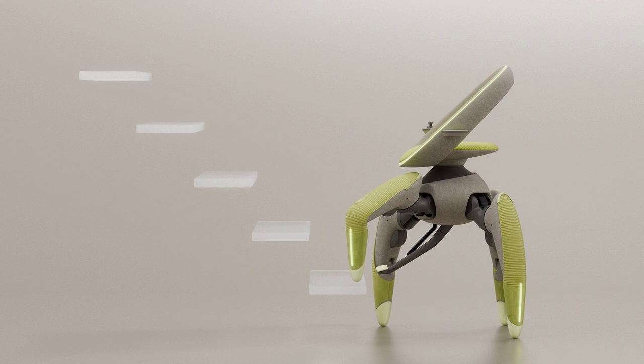Design and Functionality Mimicking Nature. The Robot Chair's distinctive appearance is a product of both form and function. Its four legs are fully articulated and foldable, allowing for remarkable maneuverability.